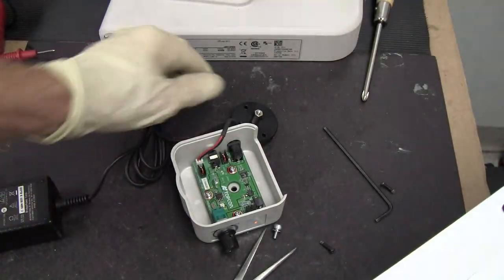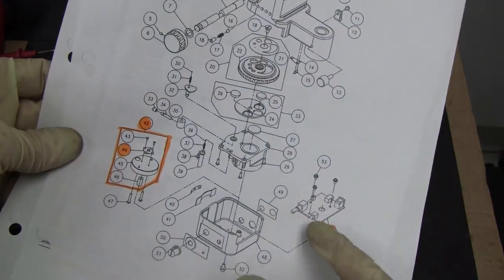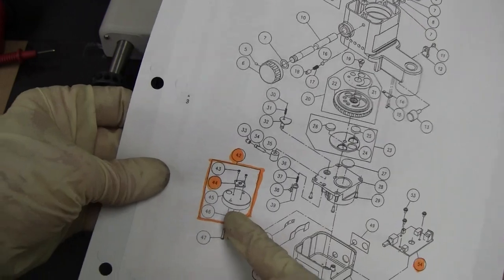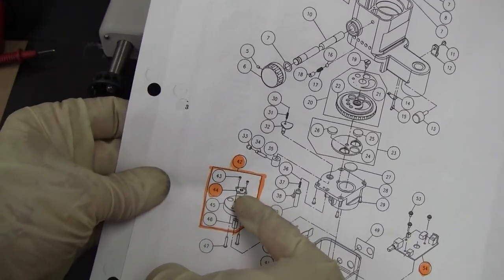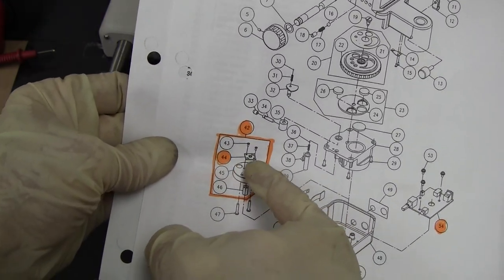If your LED was not coming on and this was good, then this would be the part, number 44.